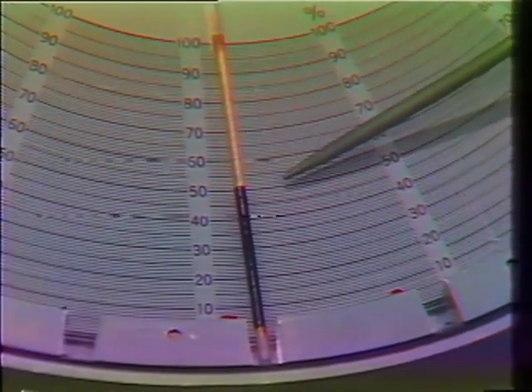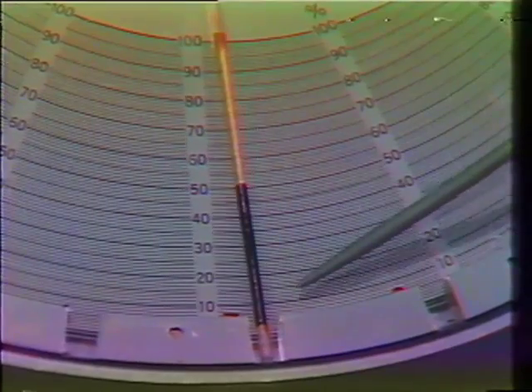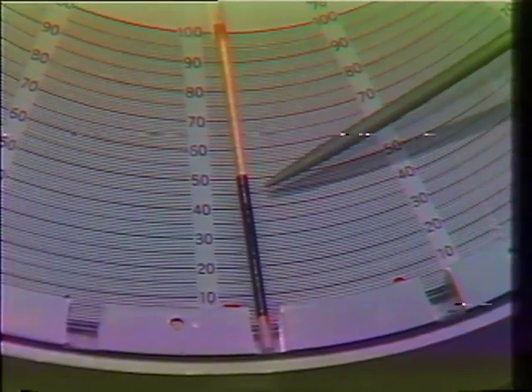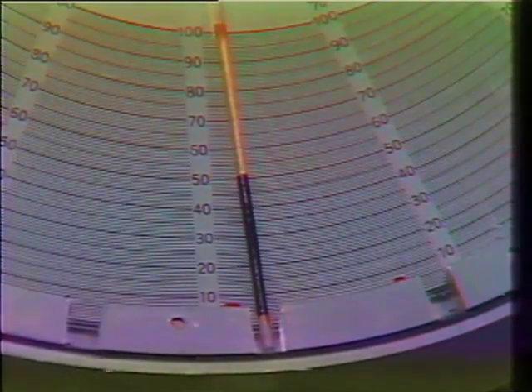At the end of three minutes of centrifuging, the sliding percentage scale is adjusted to the top and the bottom of the blood. As you can see, it has now layered into the plasma layer, a small buffy layer, and the red cell layer at the bottom. As we read on the scale, it shows that the hematocrit for this specimen of blood is in the neighborhood of 47%.